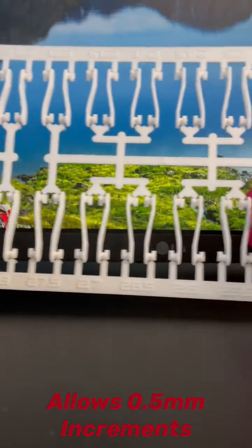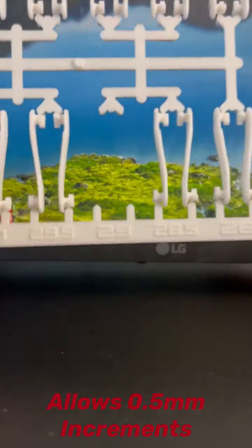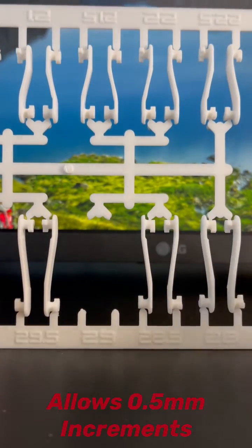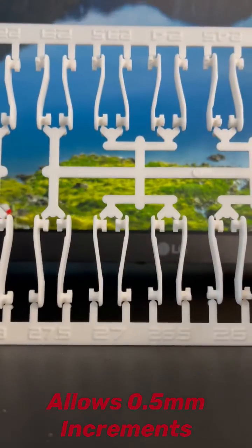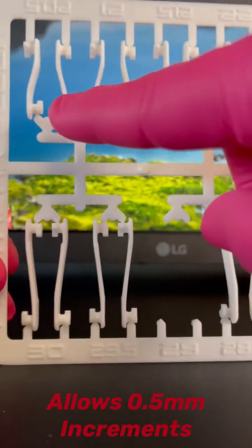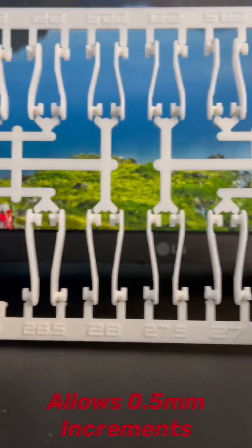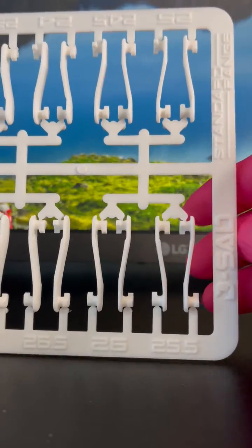You get a pack of rods — about 20 of them — depending on where the lab starts the patient. This patient starts at 29. If they need more movement: 28.5, 28, 27.5, and so on until the patient is feeling better and not having any symptoms. They don't necessarily have to use all the rods, and once they find their sweet spot, they just stay at that setting.